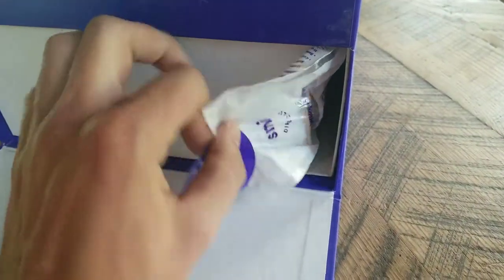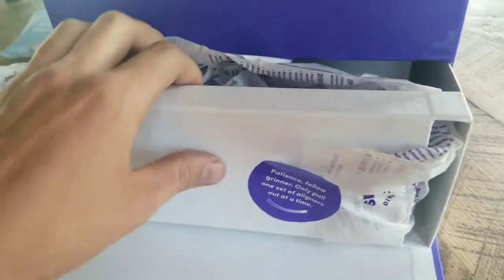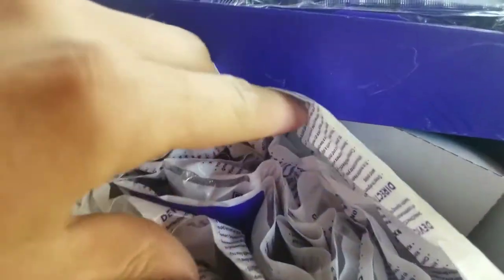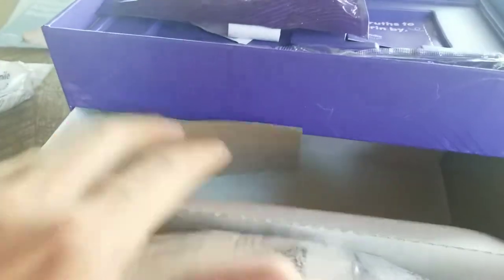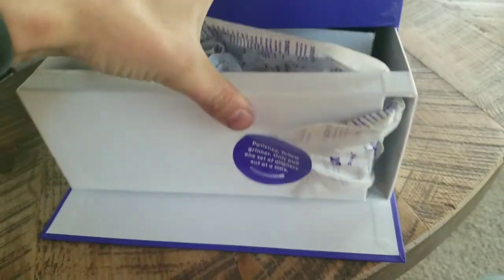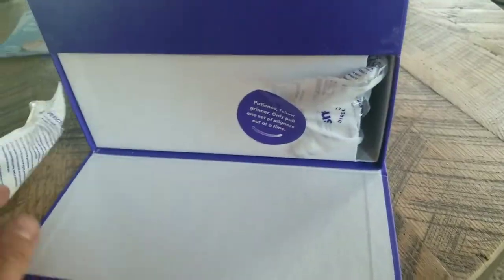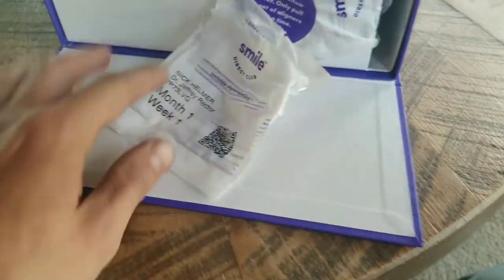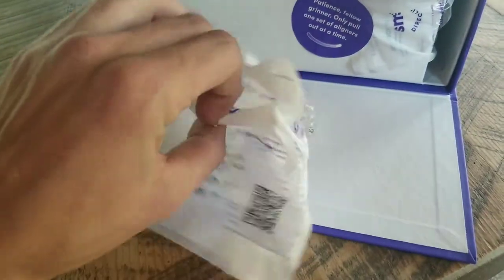At the bottom you have essentially a pull-and-rip kind of idea, which is actually pretty great — I like that. And then you have all of your liners for however long your treatment is. Since I did rip my first set out, I'll show that — they're just perforated, you just rip them out and they come right open.